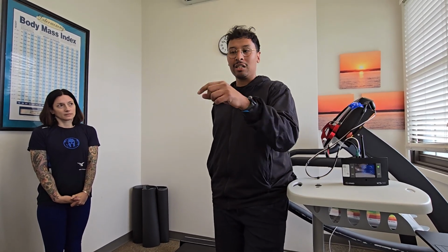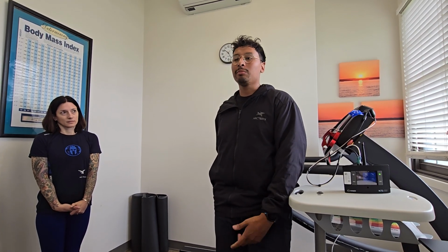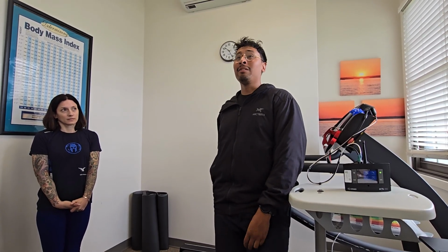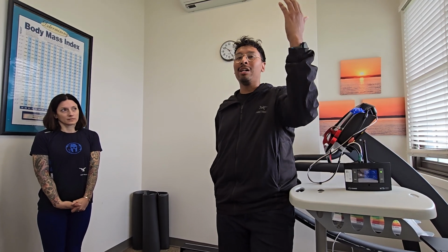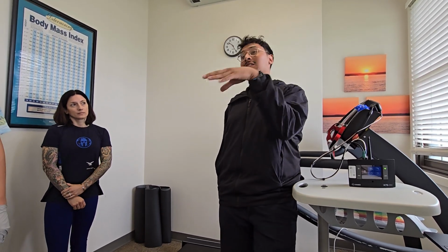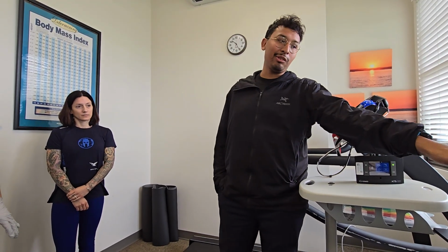It's not necessarily a VO2. It's that the analyzers aren't keeping up as well. Because of how fast they're breathing, the analyzer might not be keeping up. So really the only variable you want to look at is respiratory frequency, and you'd see that on the export as one of the columns. If they're in the mid 50s and you get 1 or 2 breaths in the 60s, they likely don't need it, because it's only 1 breath, maybe 2. But if they're constantly above 60, then that's when you want to use the mixing chamber. So that's the difference between the two.